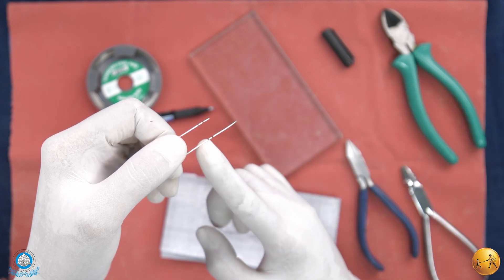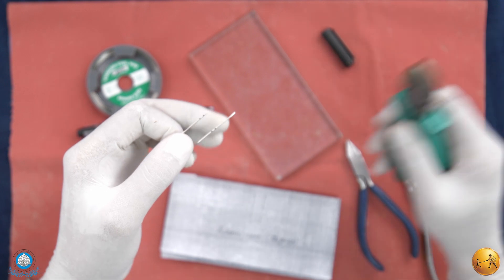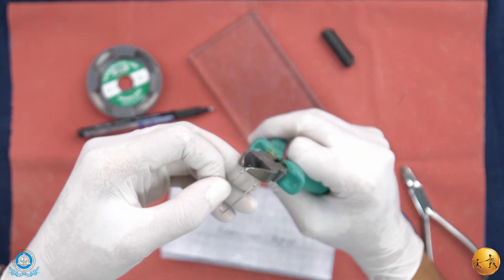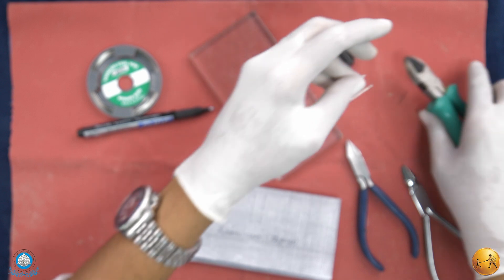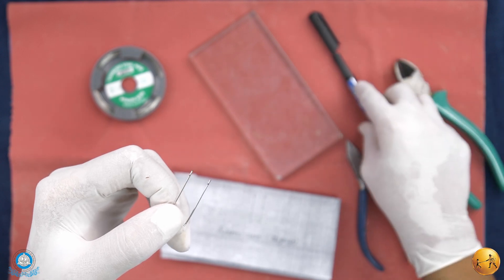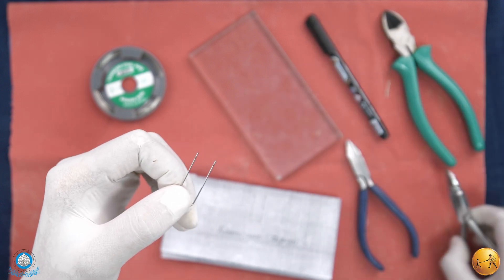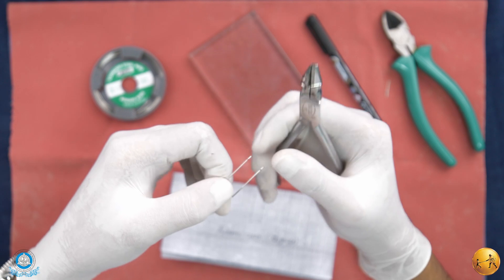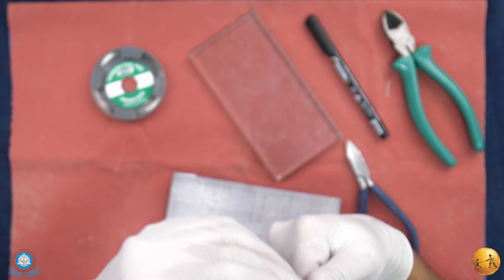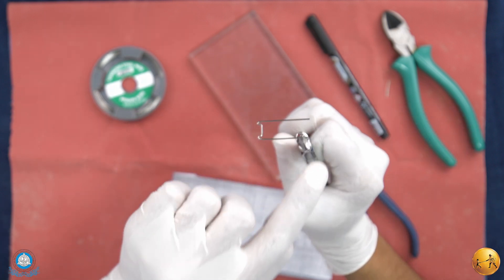The first points are at the end of the wire bending. Mark points beyond the wire bending and cut these sections. Now we need to make tag arms at the end of these wires. For that, use your universal plier — with the universal plier we will round the end and make a uniform U.